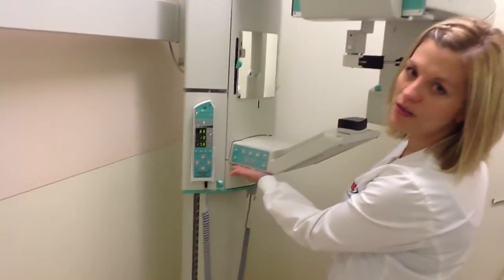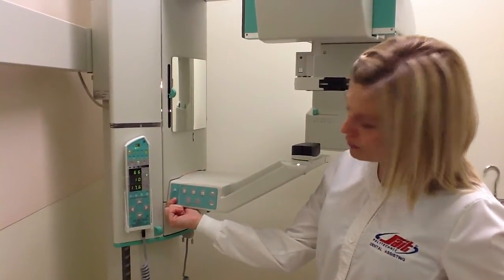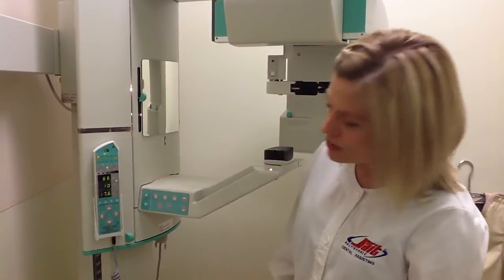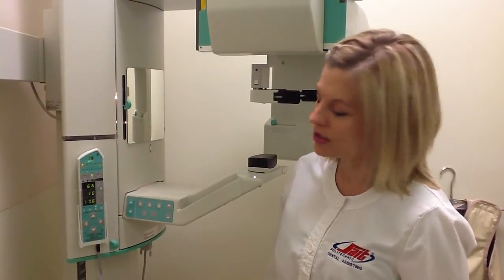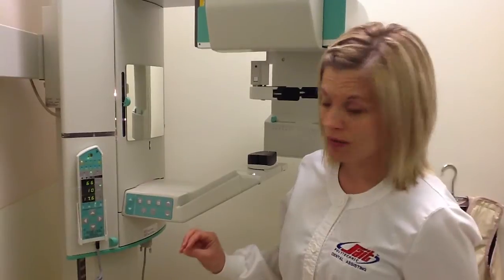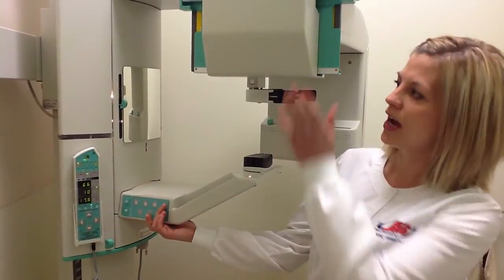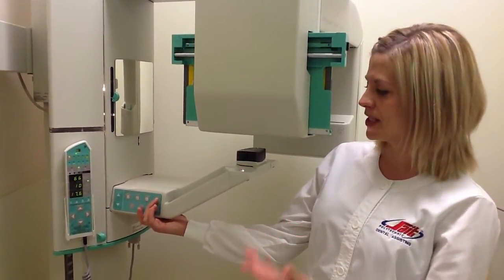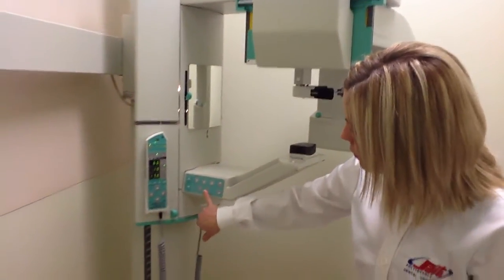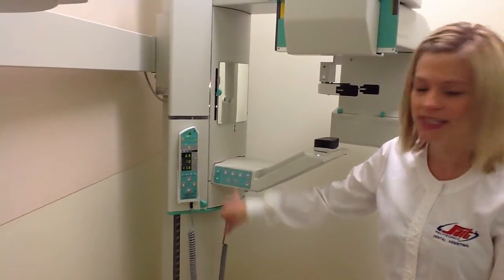To review the panel, the buttons here on the side panel, these arrows will move the machine up and down. The top row here, the first 3, those are our occlusion settings. So we'll go over that when positioning a patient. We need to tell this machine the occlusion of our patient. And then these 2 arrows, this will raise and lower our actual panel. So if you need to raise it for positioning and then lower it when you're about to expose, you just use those ones. And then finally, the lower 2 here is our light. So if we do need to reset our light, we'll hit the light button, and this is a reset button.